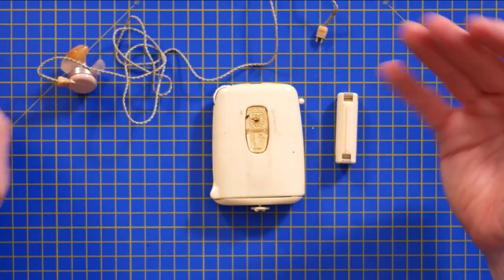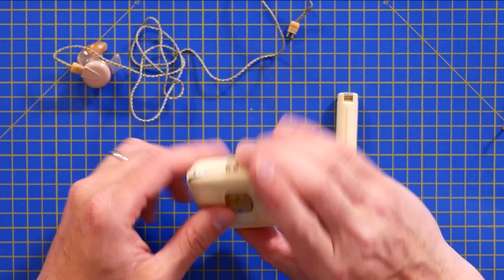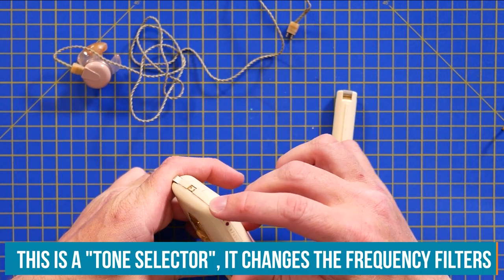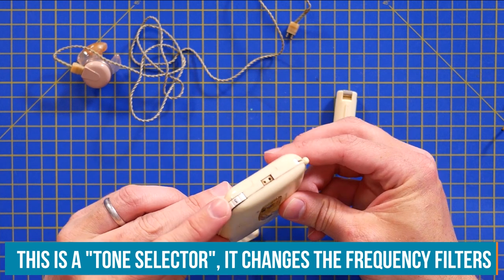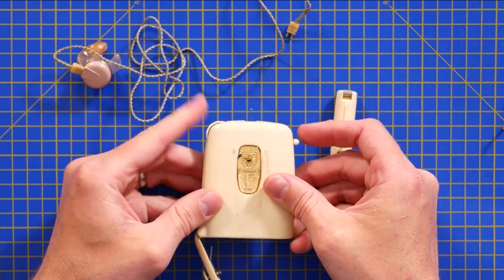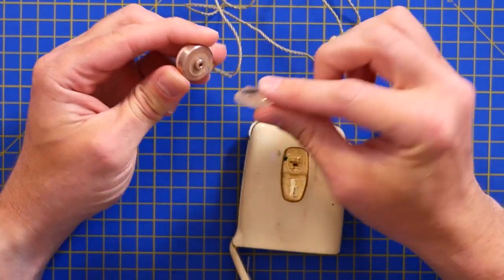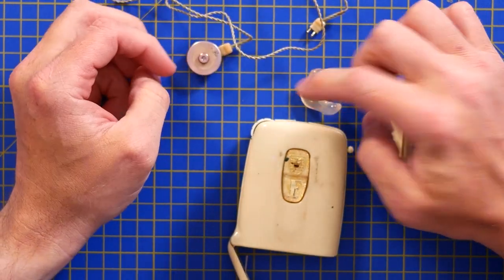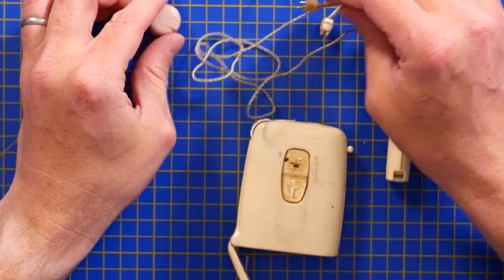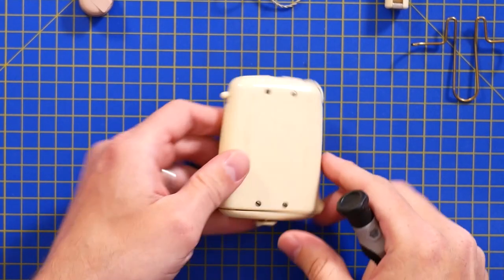There's a beautiful twisted pair, so you can already work out there's no microphone on the earpiece — the microphone has to come from the main body. There's a little volume knob or mode knob labelled one, two, three, and then an analogue zero-to-five meter — so probably modes and volume. The earpiece has a pre-moulded metal ring that snaps onto the speaker part, and there's a removable wire, which is a nice touch so if it becomes damaged you can replace it plug-and-play style.